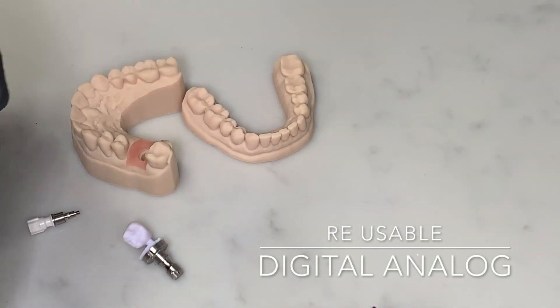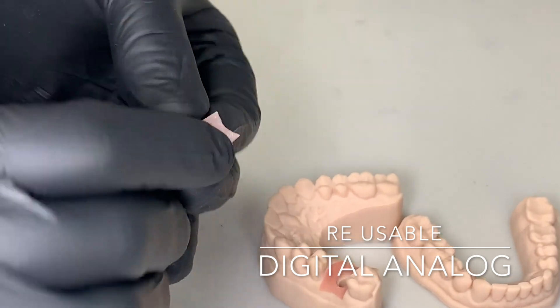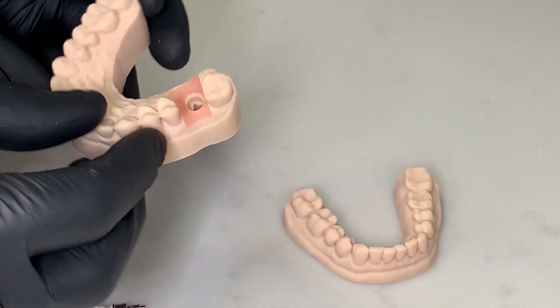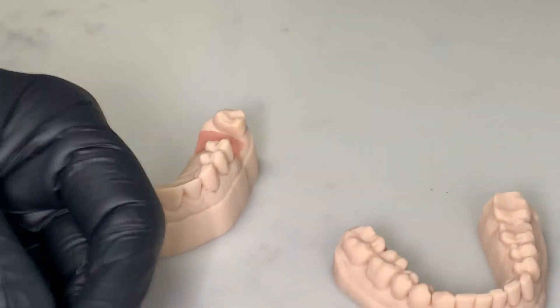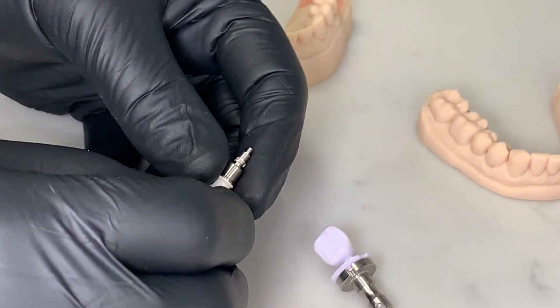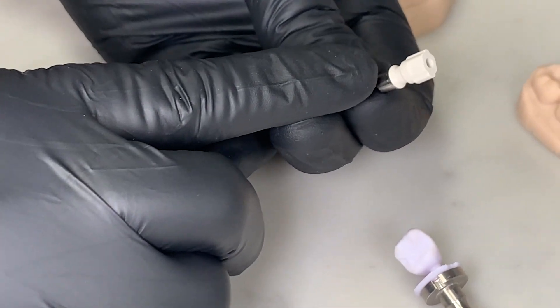Let's talk about the parts and pieces involved. First and foremost, here is our gingival mask that we printed on the Asiga printer. You can see that it's made out of rubber — it's printed flat on the build plate, with no supports that you have to remove that might inhibit seating it. Here's the model: if you zoom in real close, you can see there's an anti-rotational feature in this model. And so here we have an NT Trading DIM analog — I'm not sure what DIM stands for, but it must be something digital. You can see there is a trilobe that's going to engage that anti-rotational feature.